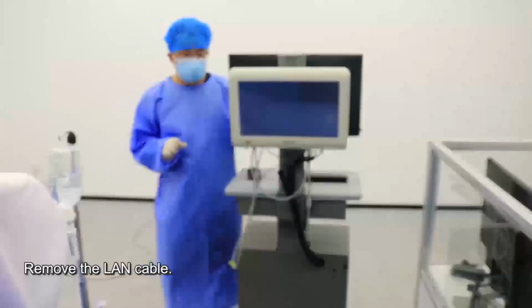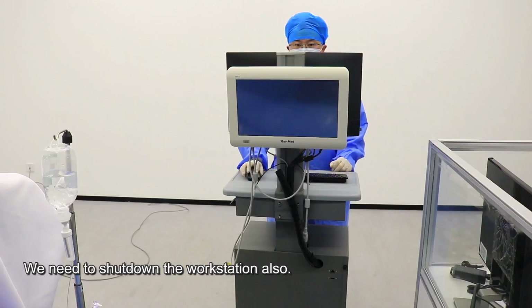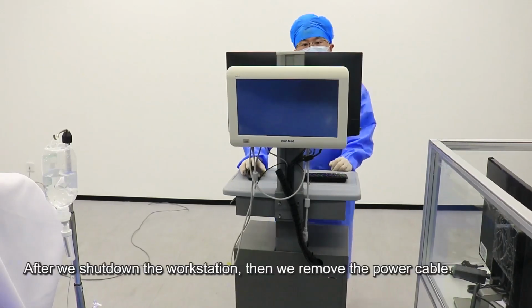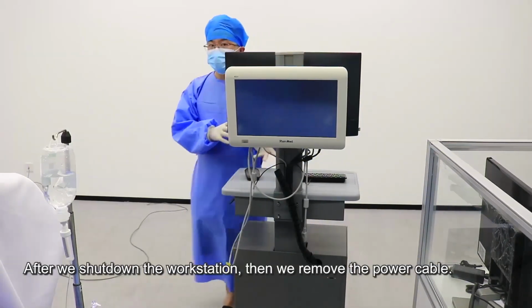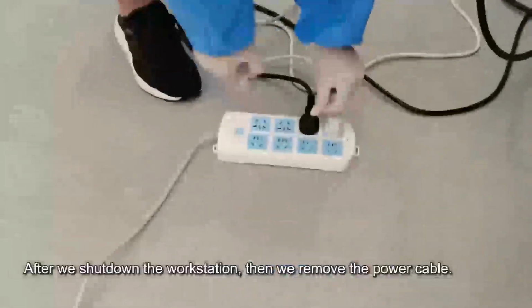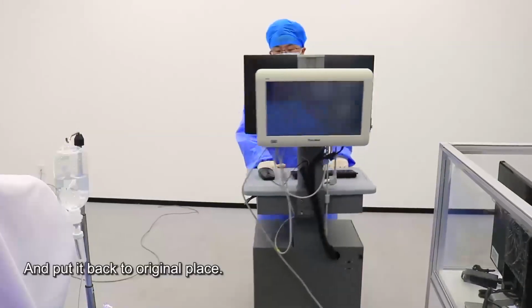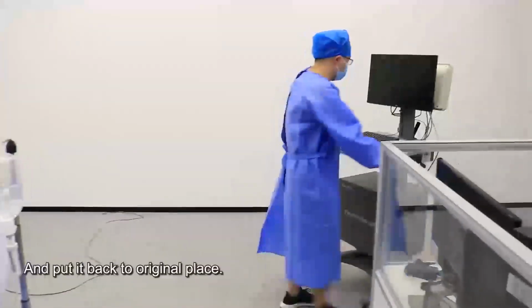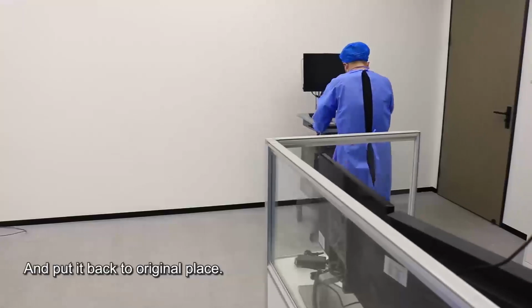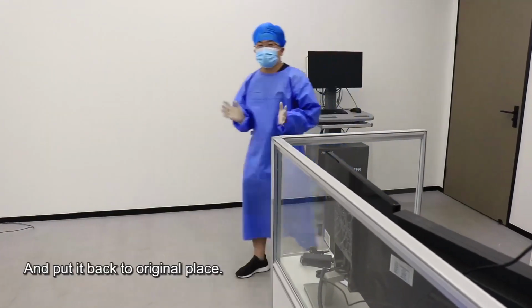We need to shut down the workstation also. Okay, after we shut down the workstation, then we remove the power cable and put it back to the original place in the Cath Lab. Okay, that's all. Thanks for your attention.